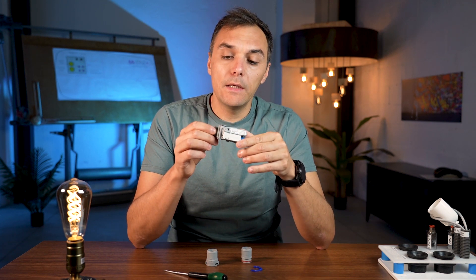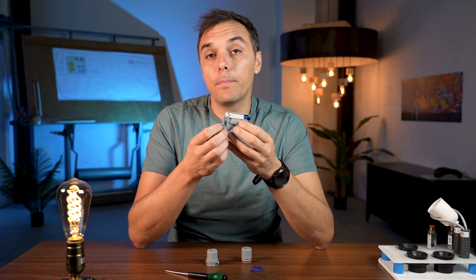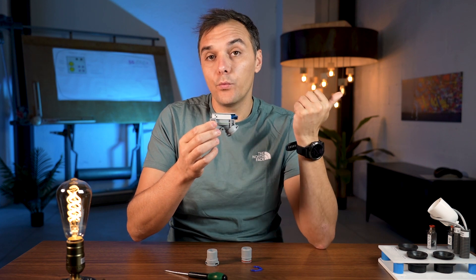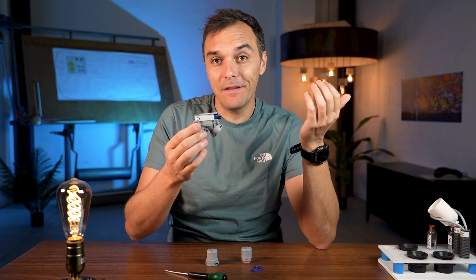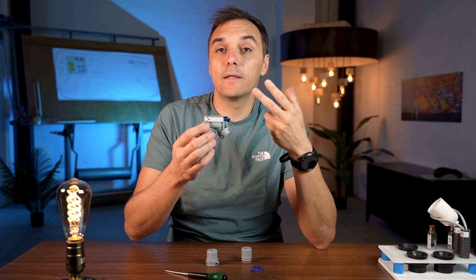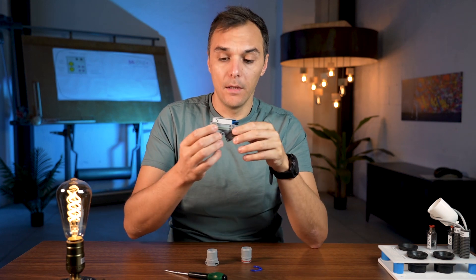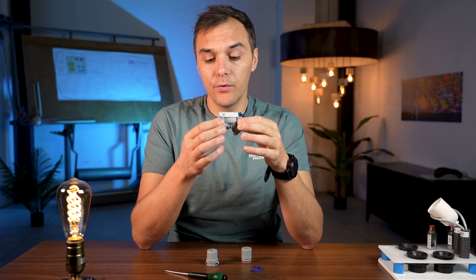When you use this valve we need to apply it in every dental unit. If we have one unit with one motor we don't need this valve, but when we have at least two dental chairs — up to three, four, or five — we need to apply this valve in every dental unit.